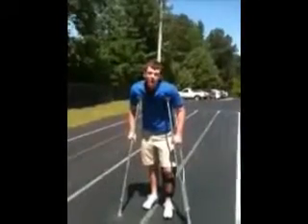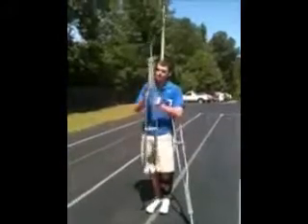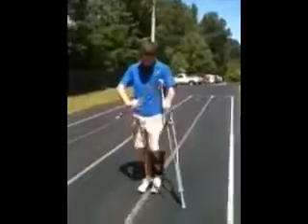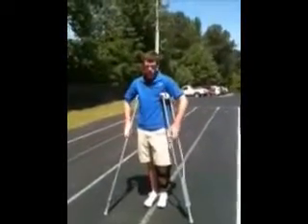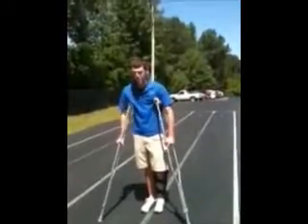Hi! I'm going to teach you how to walk on crutches. First thing is you want to get your height set. I'm about 6'1", so it's set to 6'1". Then, what you want to do — you don't want to put them in your armpits. You want to put them just under it to your side and hold them really tight.